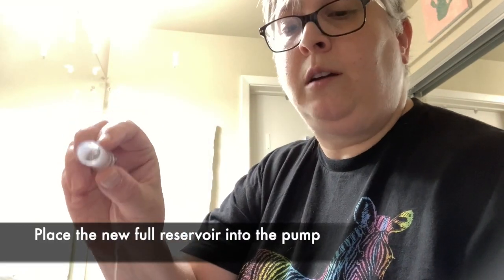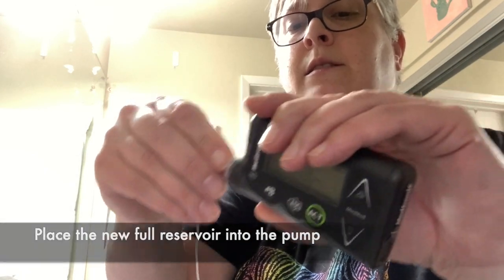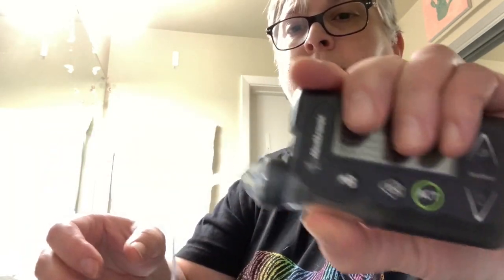This thing is pretty cool. I was super impressed with the biomechanical engineering of the Omnipod, but the simplicity of the good old regular insulin pump — the design really has not changed in like 20 years. Rewind complete — buzzing. It says: please place and lock the reservoir in the pump and then press ACT. So that's our cue to take the reservoir, stick it in this end, and it just slides in and twists and stops. It's idiot proof — you can't overturn it, it's just in there. So now we press ACT.